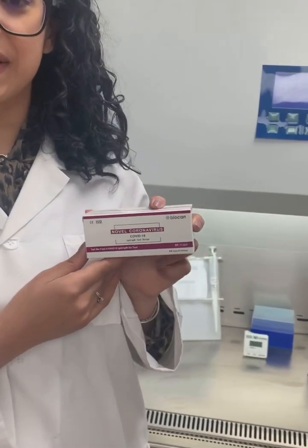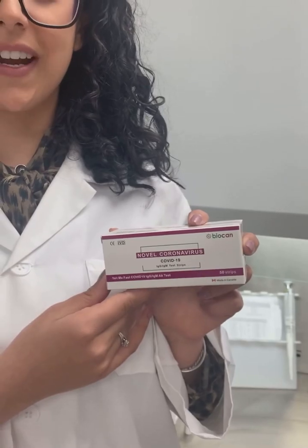Today we're going to be doing a demonstration of the Biocan COVID-19 IgG-IgM antibody test in the strip version. As you can see it's packed very compact and there's actually 50 tests in this box. Easy to store and easy to transport.